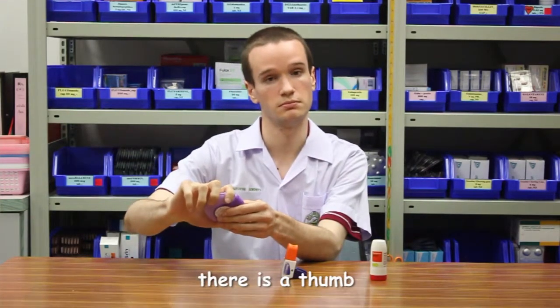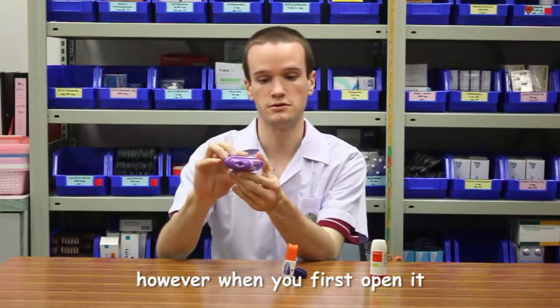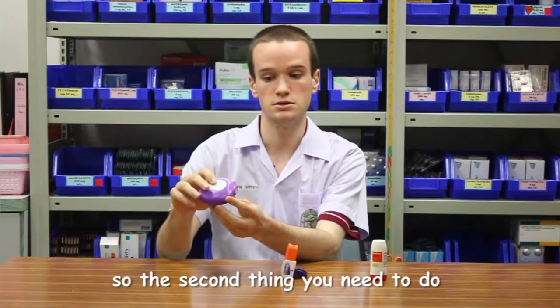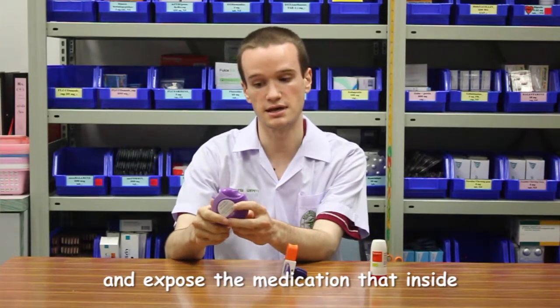and there's a thumb part on the side. You can just slide it open, and that reveals the mouthpiece. However, when you first open it, the mouthpiece is not open. So the second thing you need to do is flip the lever on the side, and this will open up the mouthpiece and expose the medication that's inside.